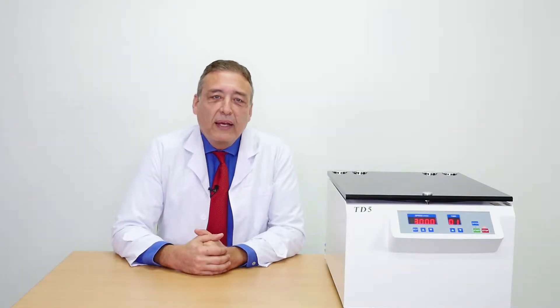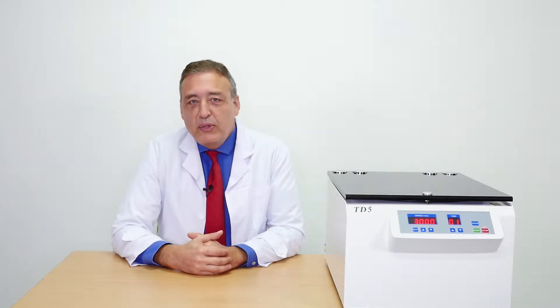Hi, I'm Dr. Bruce Allian, designer of the World PRP Tube. I have the pleasure today to explain to you in a few steps the way to use the tube in order to get your customized PRP.